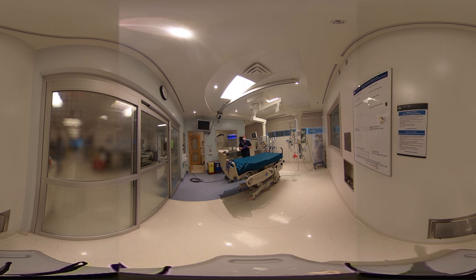The sensors have different lights. When the red light is on, that means your sensor is active and ready to start registering. There are four sensors total.